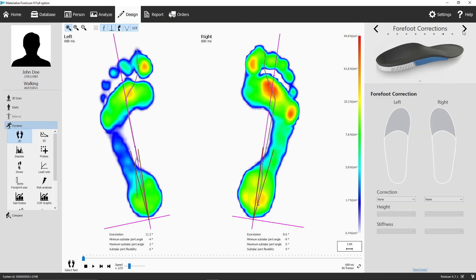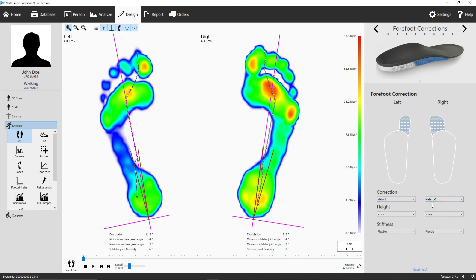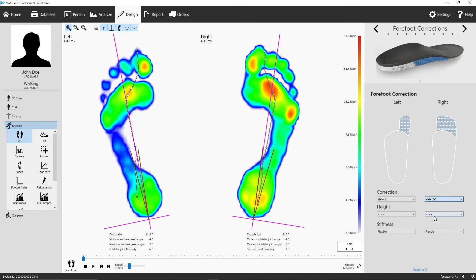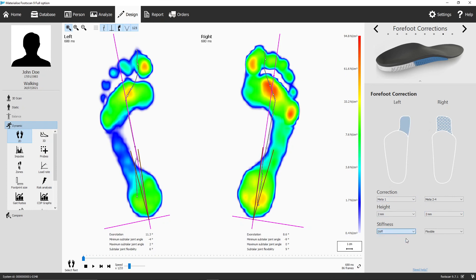The forefoot corrections panel is the last one, and it gives you five different forefoot correction options. You can go for a medial meta 1 to 2, or a lateral meta 5 forefoot correction, or choose one of the specific corrections like a meta 1, meta 2 to 4, or a meta 2 to 5 forefoot correction. They can go from 2 to 4 millimeters high, and are available in the stiff and the flexible option.